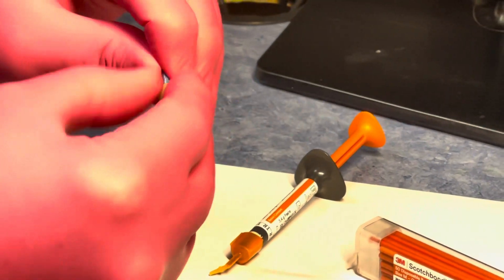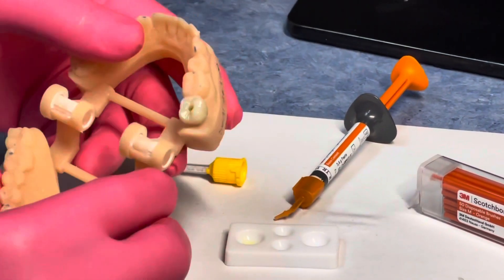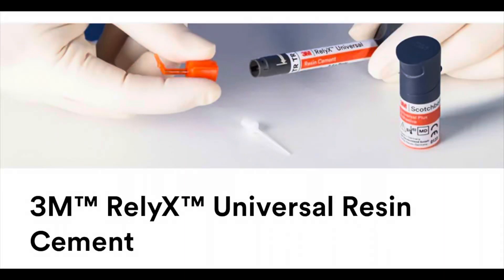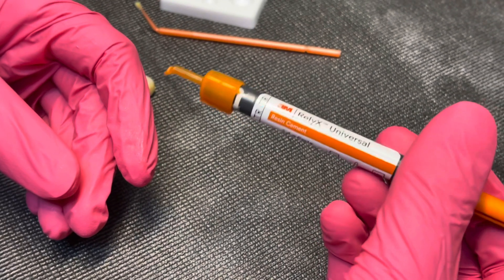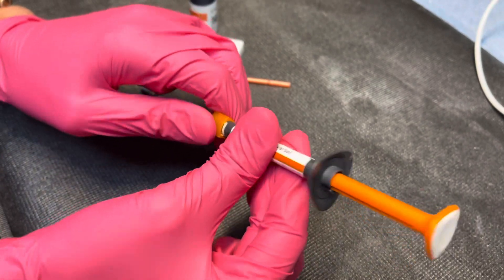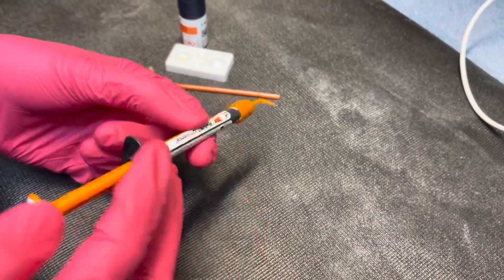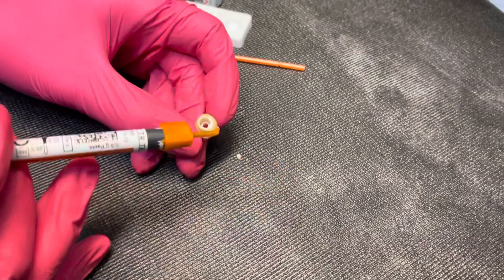I find it important to have this assembly on the printed model when cementing, so you can ensure the crown is in the perfect position — there's a tiny bit of room that the cement will take up. We'll use Relyx Universal Cement, which has a unique syringe with a tip offset by 45 degrees. You turn it 90 degrees to snap it into position, which opens the syringe valves, and then dispense through it. Express a little bit first to ensure a homogeneous mix at the tip.